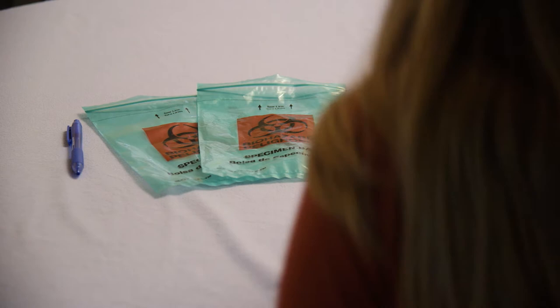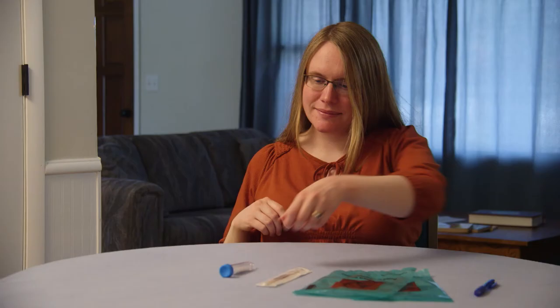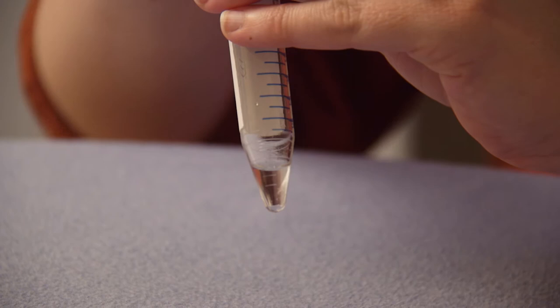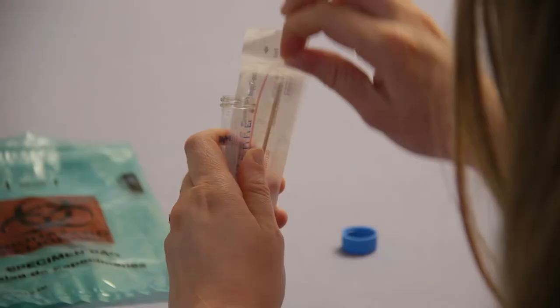First, wash and dry your hands. Hold the tube upright and unscrew the cap, being careful not to spill the liquid inside the tube. Place the cap on a clean surface face up.